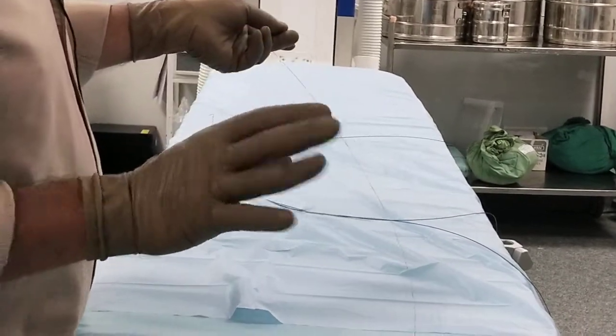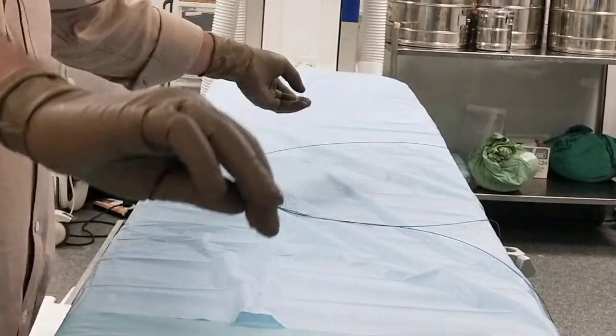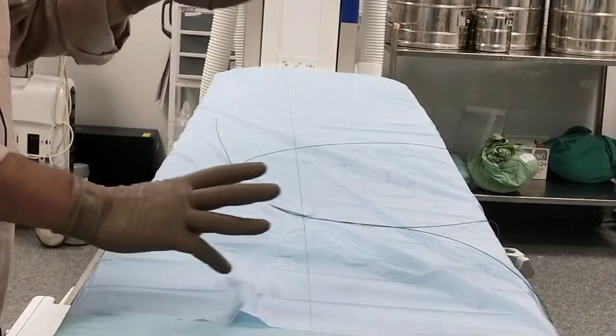You have seen these guide wires and you have to memorize them — see the structure and the various different uses. When you memorize it, it will be easier for you to handle these guide wires when using them for diagnostic or intervention purposes. That's it for now. Take care.